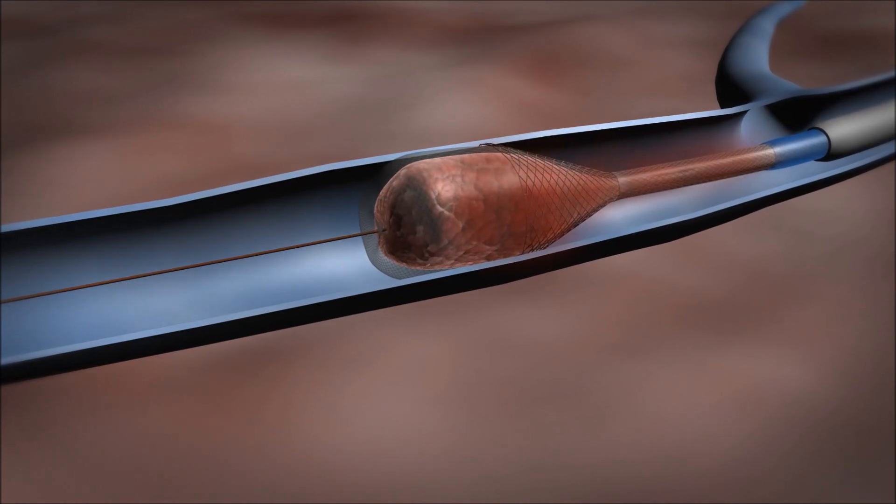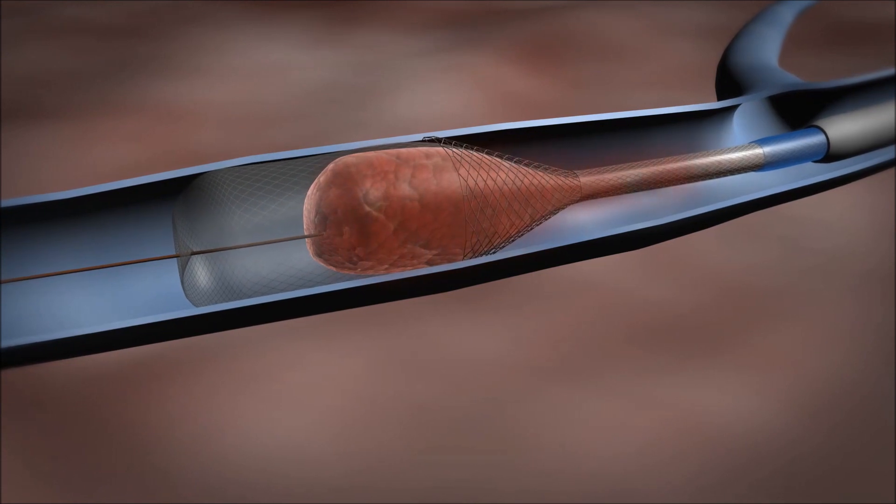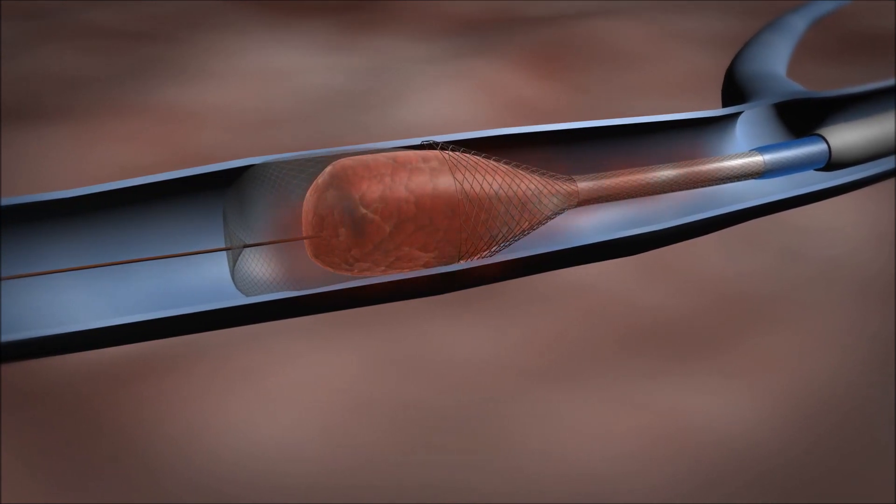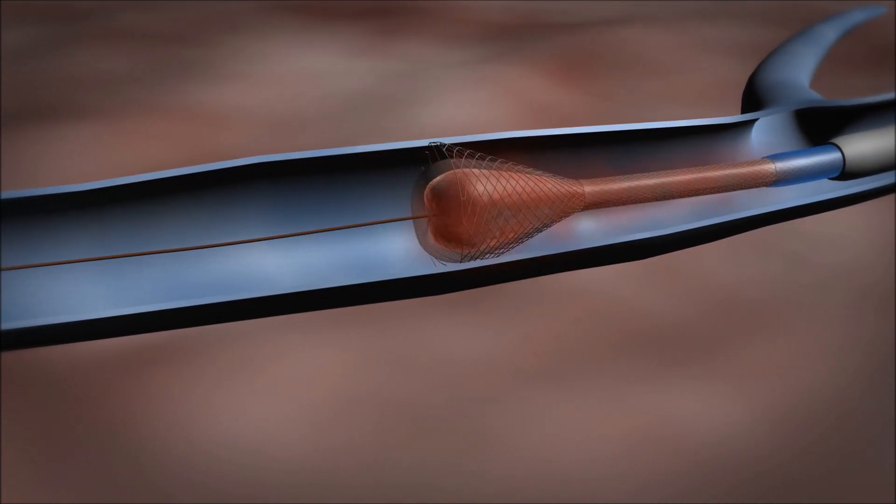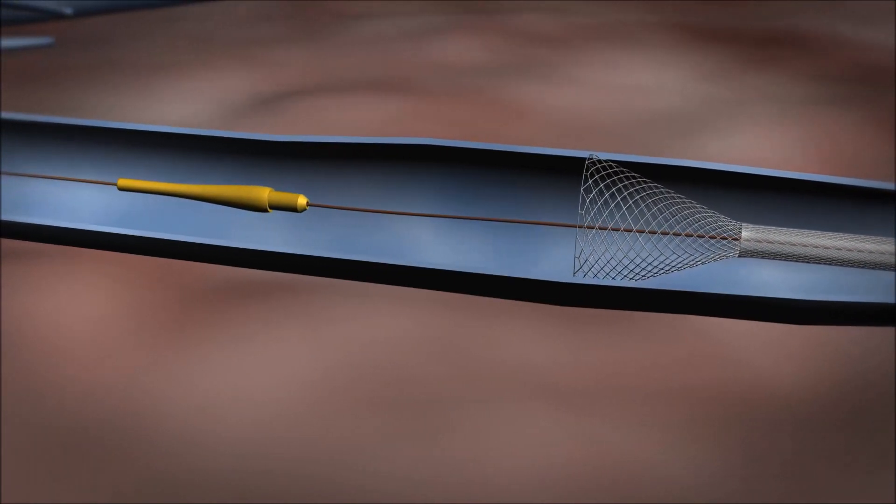The conformable basket can be dynamically lengthened distally to disperse the clot within the basket. The final retraction of the basket compresses the clot, which minimizes blood loss and allows for complete clot removal.